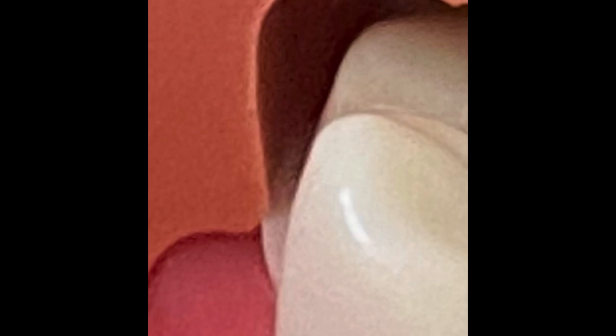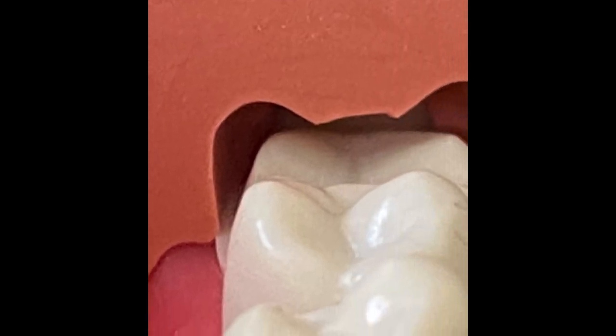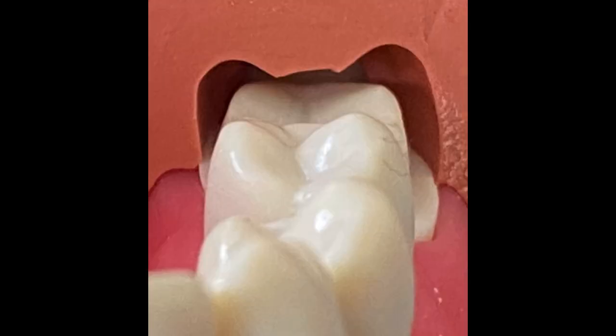If you notice, how much reduction do you think there is? Now, how about if I tell you this is not the buccal — this is the palatal? Look very closely. This is the buccal. This is the palatal. How much palatal reduction do we do in porcelain fused to metal?